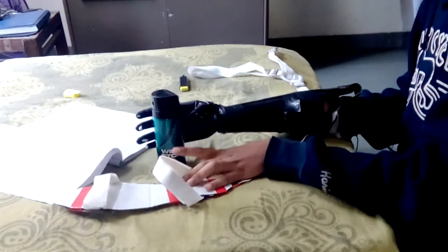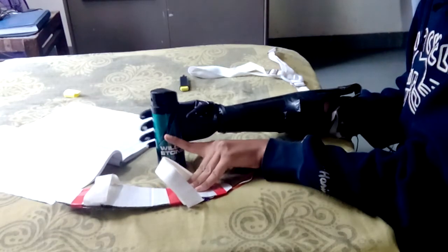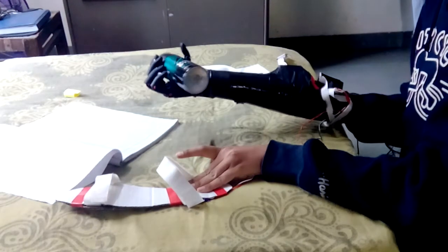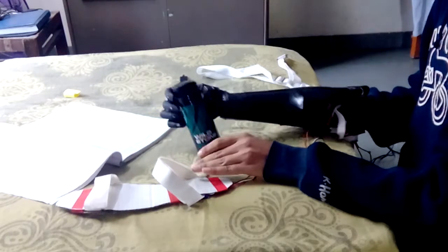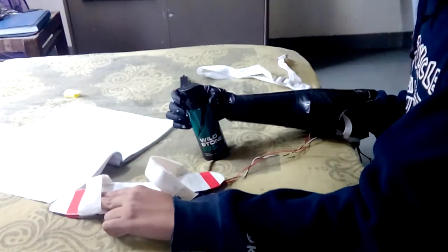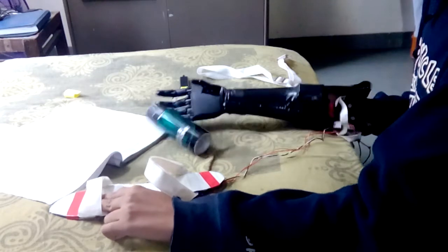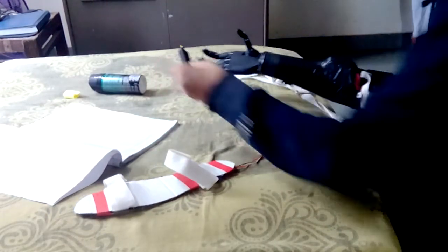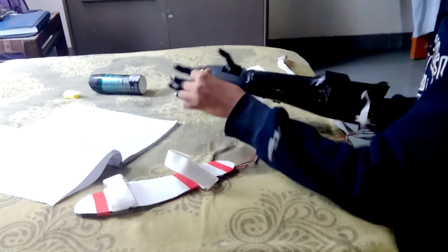Let's see if it's possible to grip. Okay, it's gripping, and if I put pressure here on the toe, it will release the bottle. Let's see if it's possible to write with this hand.